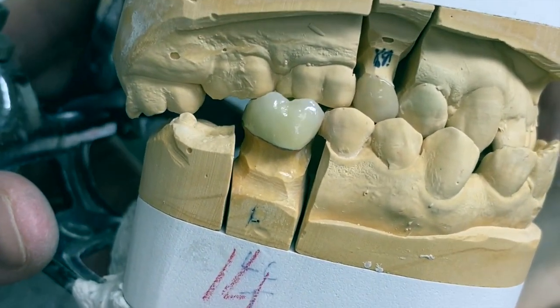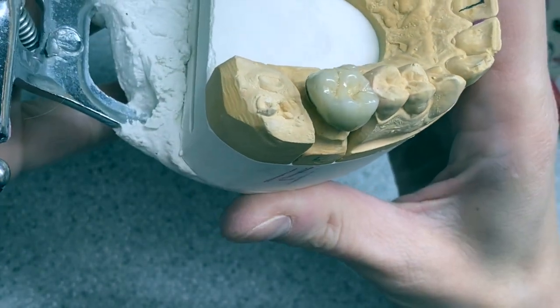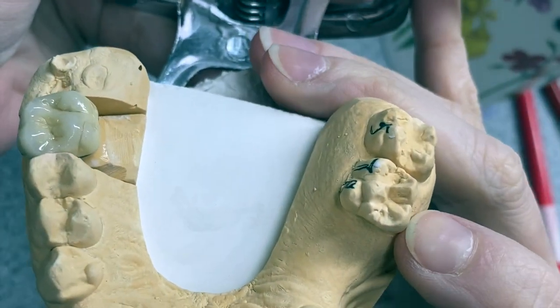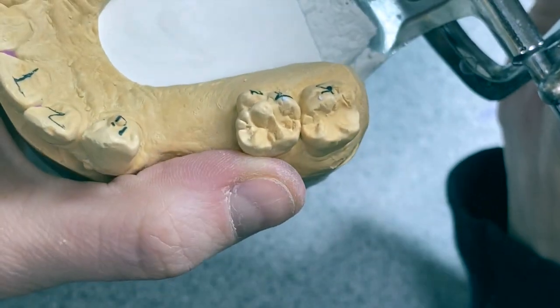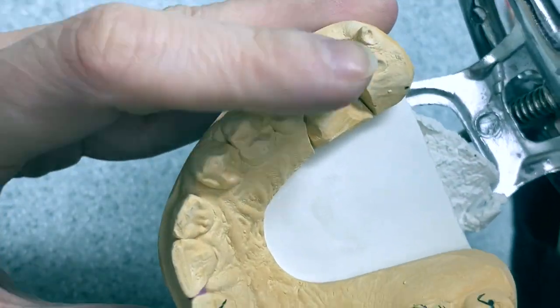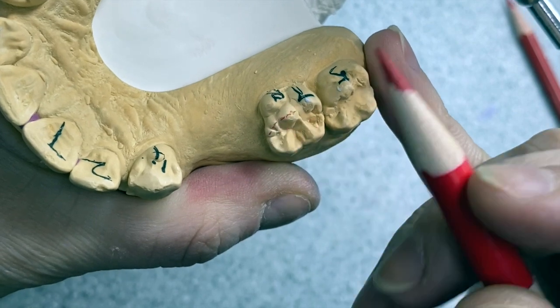Hello, how are you today? Let's talk about the morphology of the crown — tooth number 14, or number 3. It's the same tooth, just on a different side. This is the natural tooth and this is the crown that I made.